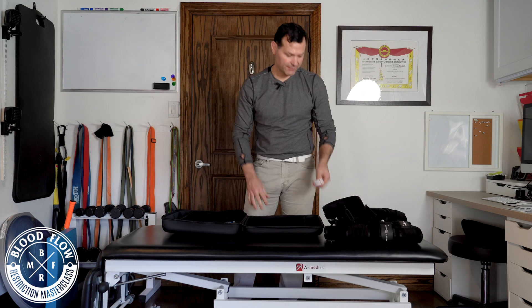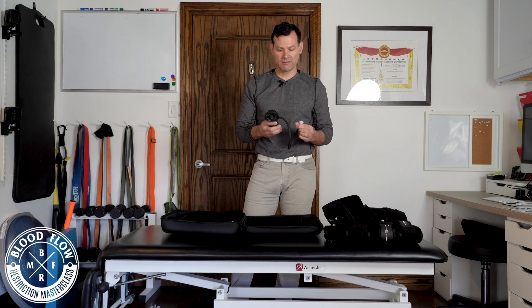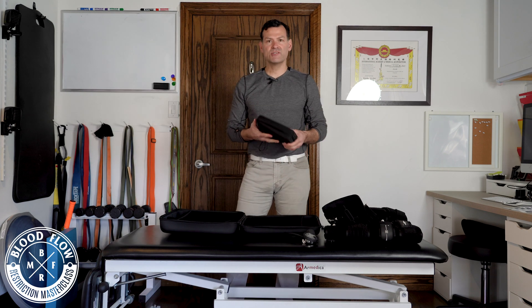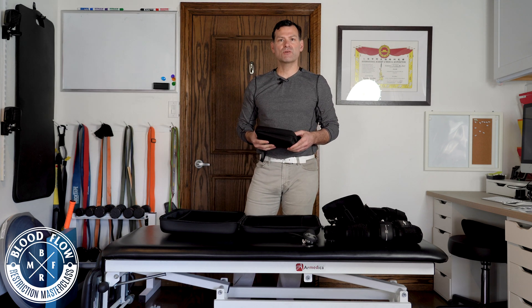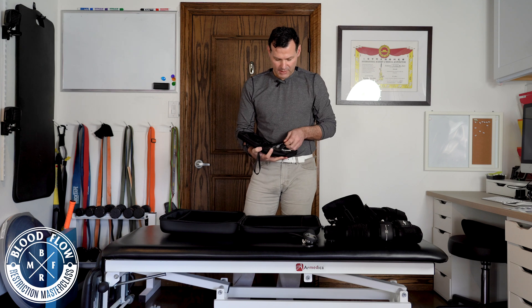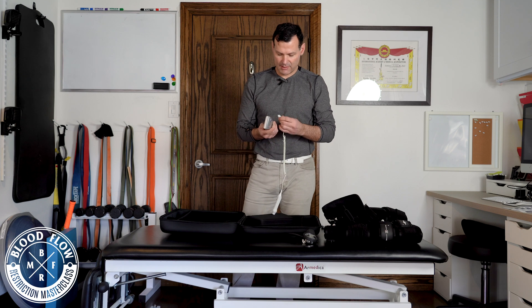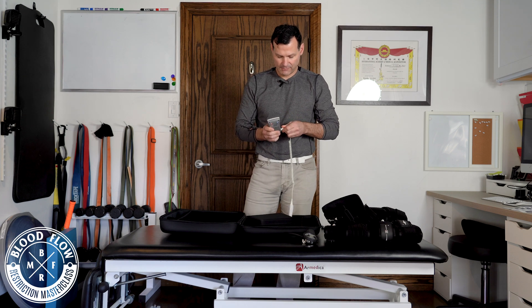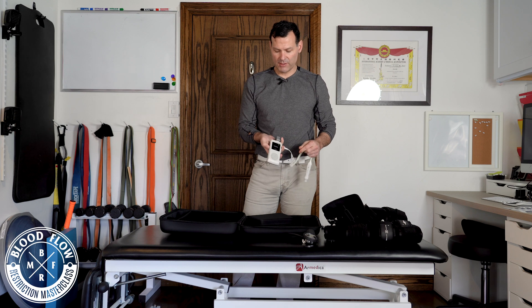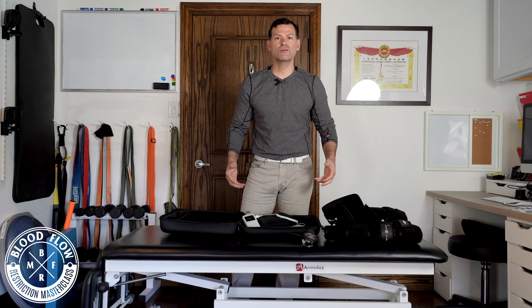You get a tape measure. You get a high-level sphygmomanometer that has been tested for 10,000 inflations. And you also get an auditory Doppler that we use in order to get limb occlusion pressure. That auditory Doppler is very simple to use — it's basically just two pieces, it plugs in, you turn it on, and you increase the volume. And that's it — that's everything that's included in the clinical set.